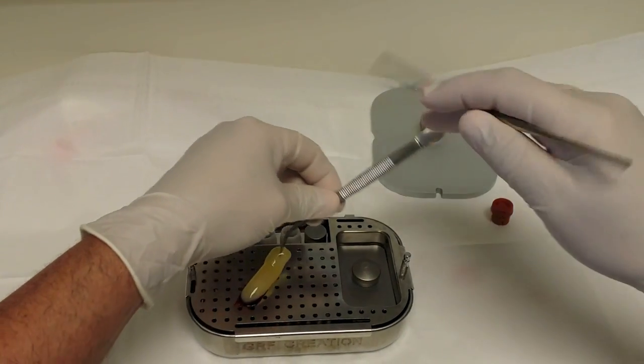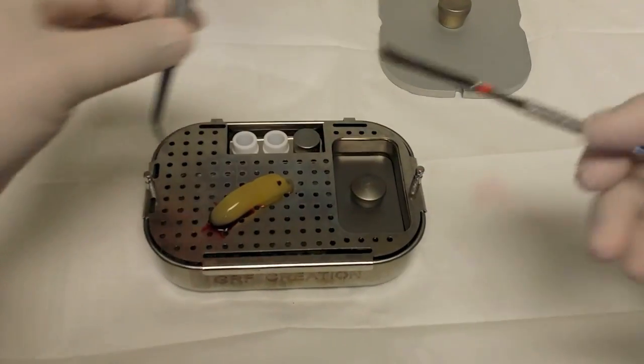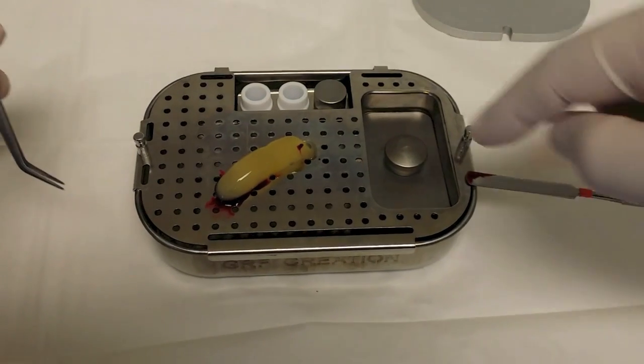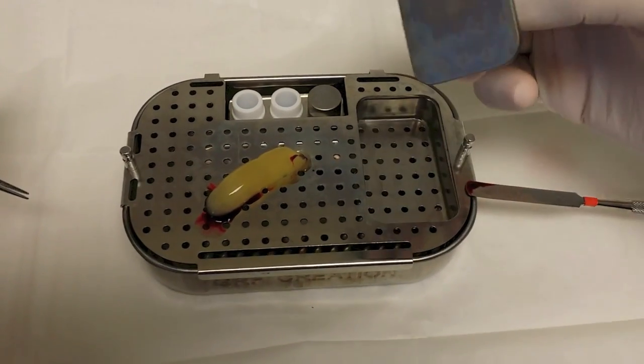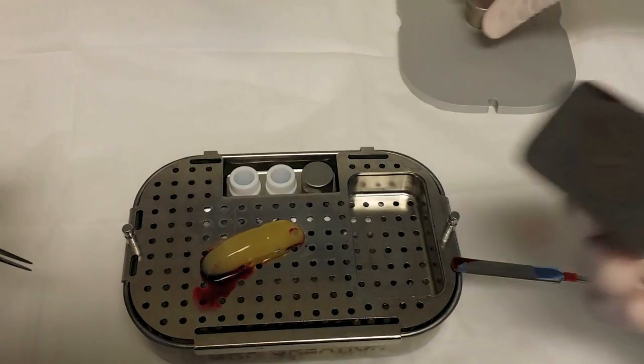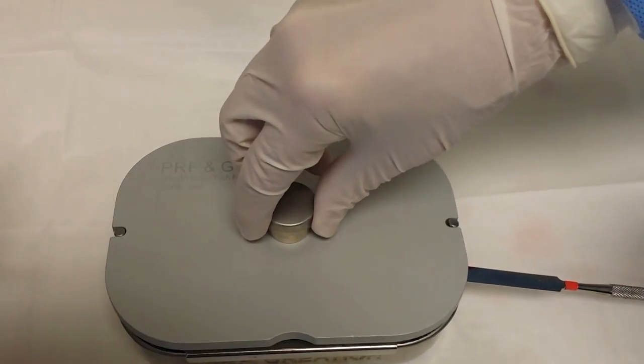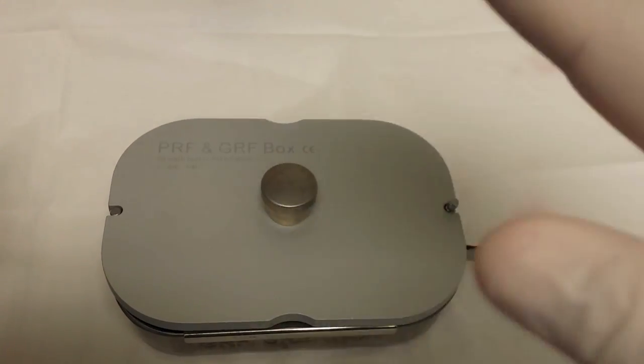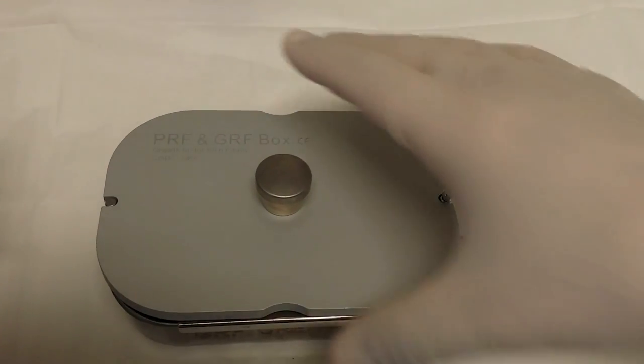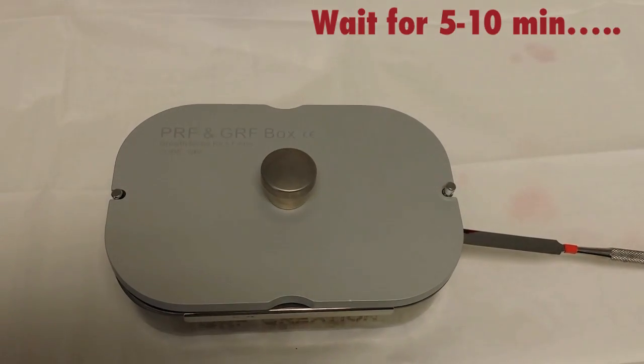And this is the box that you can purchase as well. Put that right there. Now notice this is like a little flat tortilla maker. Put that sucker on there, the big one, instead of the small one. Did you compress it or no? Just leave it. Gravity will take, gravity, a couple, five minutes, ten minutes.